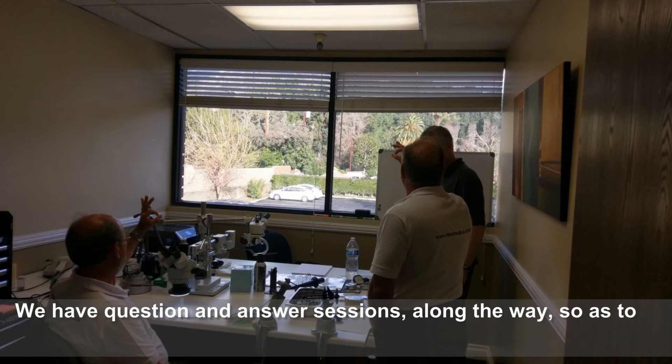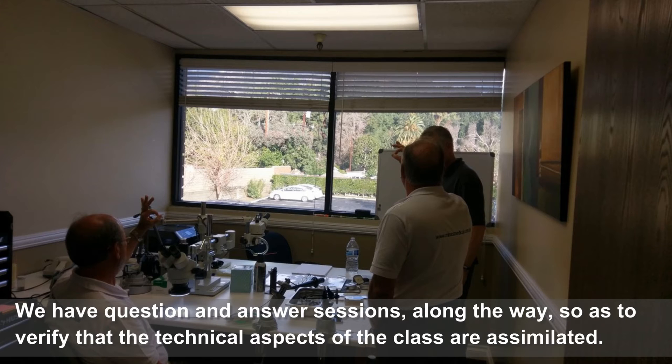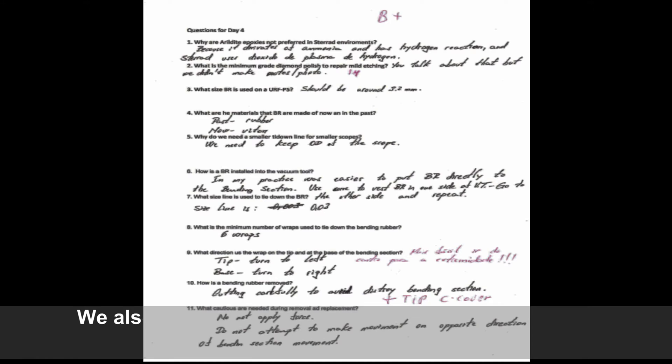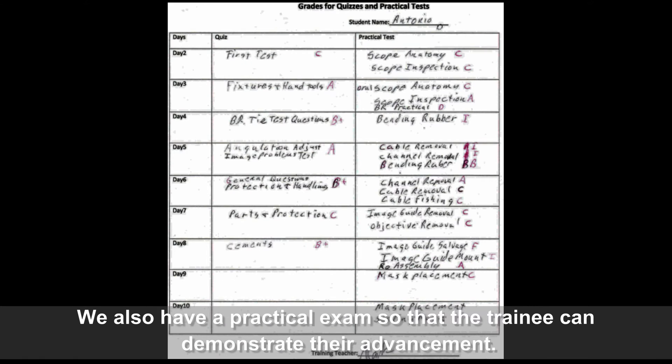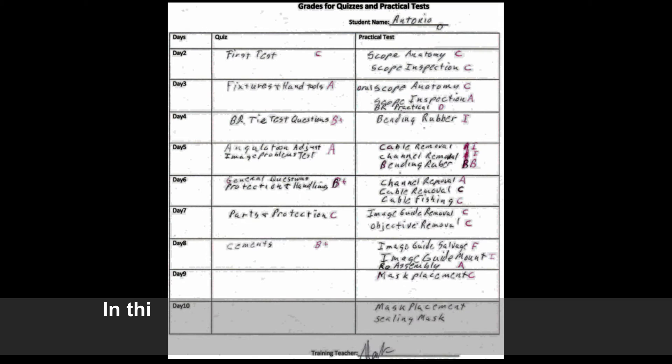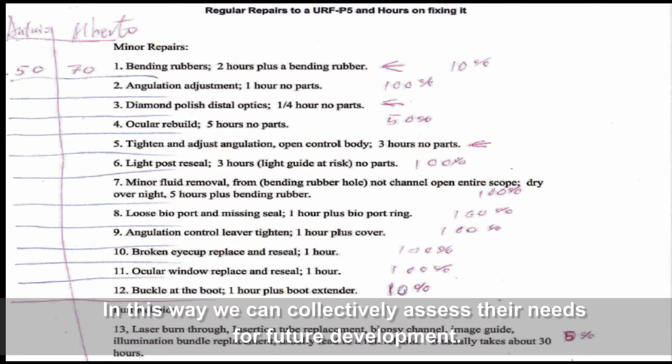We have question and answer sessions along the way so as to verify the technical aspects of the class are assimilated. We also have a practical exam so that the trainee can demonstrate their advancement. In this way, we can collectively assess their needs for future development.